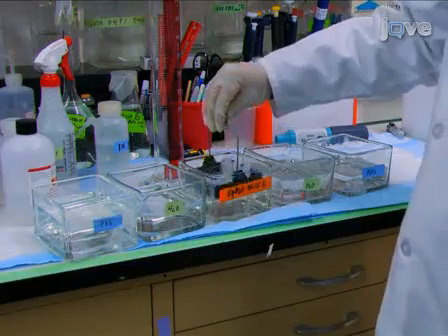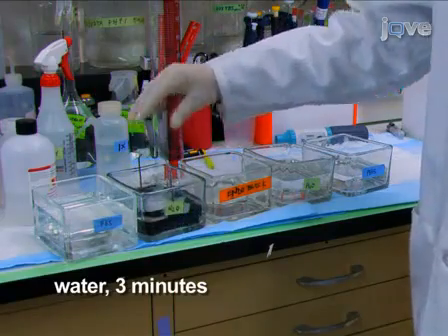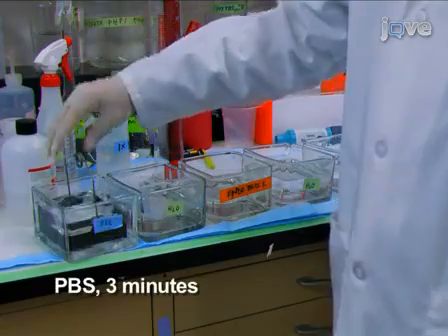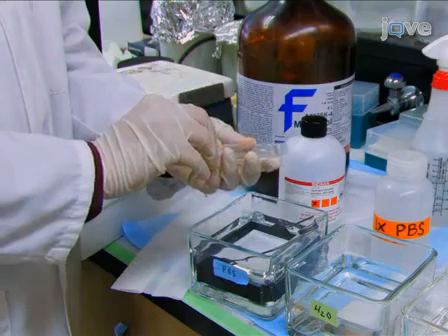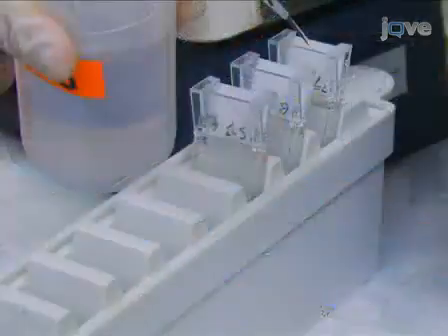After 20 minutes in the endogenous peroxidase block, the slides are washed in distilled water and then PBS for 3 minutes each. For immunostaining, place the slides into flat, narrow staining racks called sequenza and rinse with PBS.